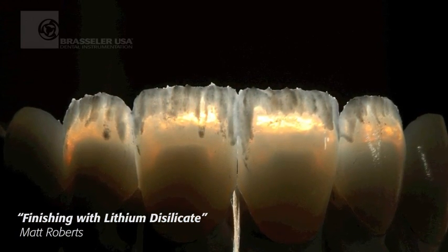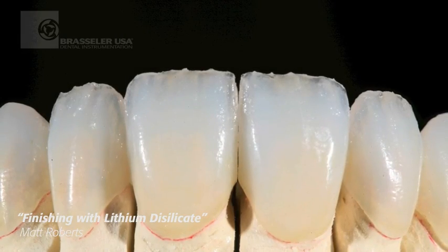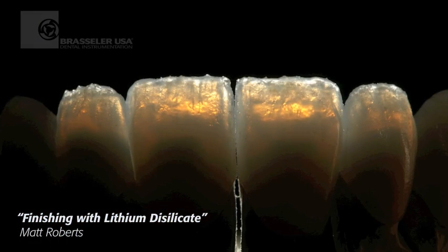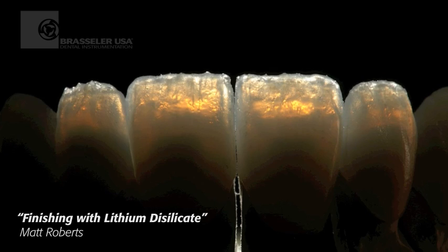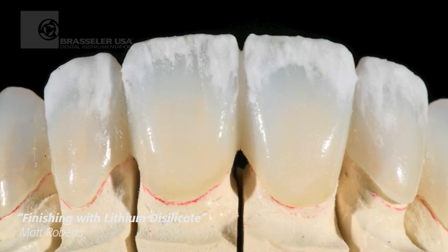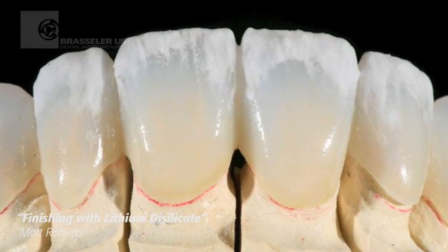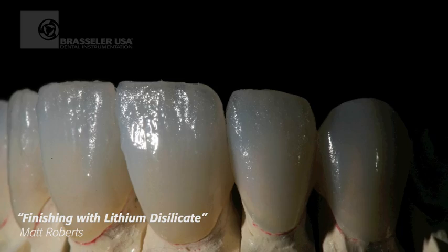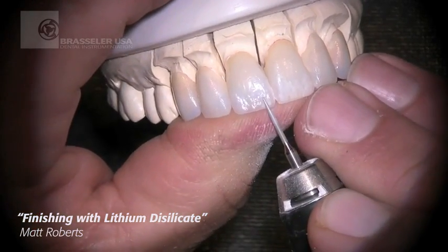Here's just a couple of still photos showing our micro layering process and the results of the first bake after it's fired. You can see the opalescent quality of the new lithium disilicate materials. We see our final bake here — we're going to full contour — we fire that, and now we have to very carefully blend this incisal third back into the gingival half that's already glazed.